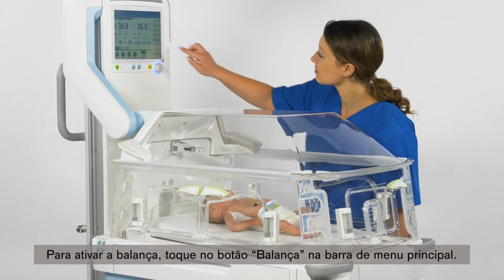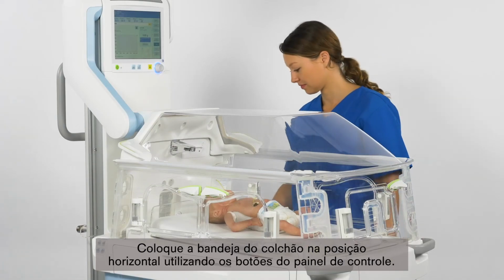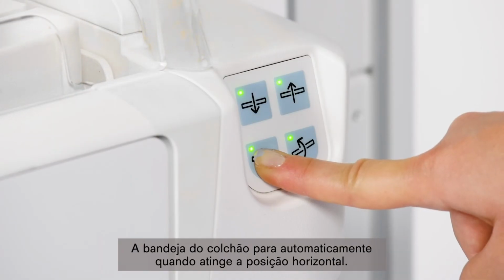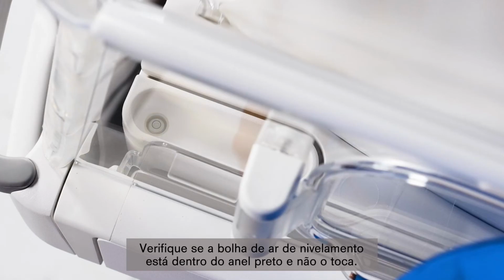To activate the scale, touch the Scale button on the main menu bar. Then place the mattress tray in a horizontal position using the mattress tray control panel and the level. The mattress tray will stop automatically once it reaches a horizontal position. Afterwards, check that the air bubble in the level is within the black ring and is not touching the ring.